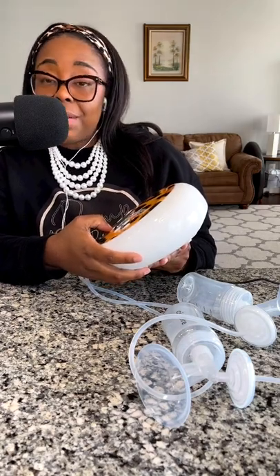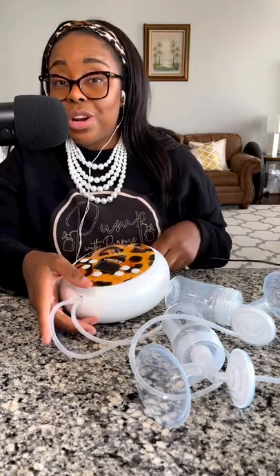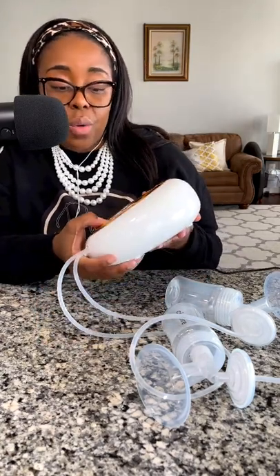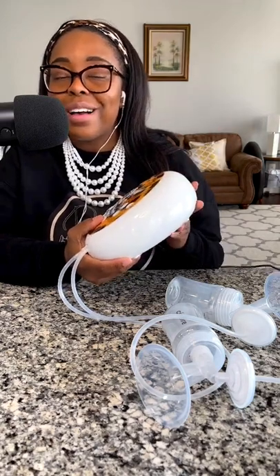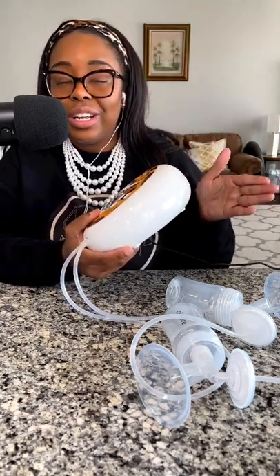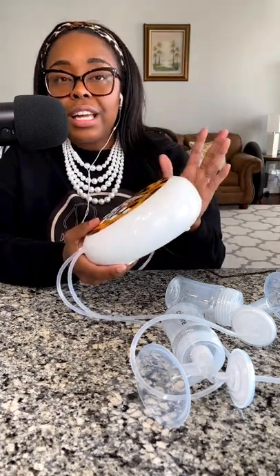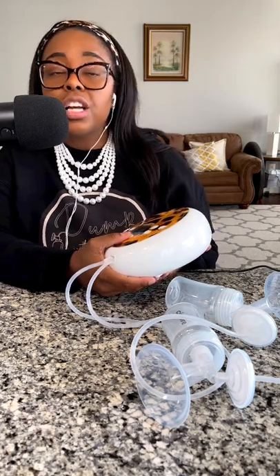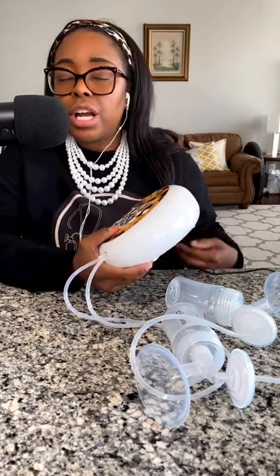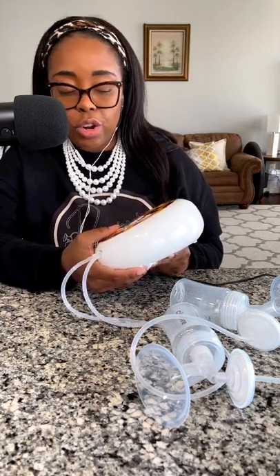Keep in mind that when you turn the pump back on it stays at the level it was at, so clear it down to your desired starting settings. You can customize suction speed and strength: going faster or slower, creating a stronger or lighter suction. That ability to customize is very important throughout your pumping journey.